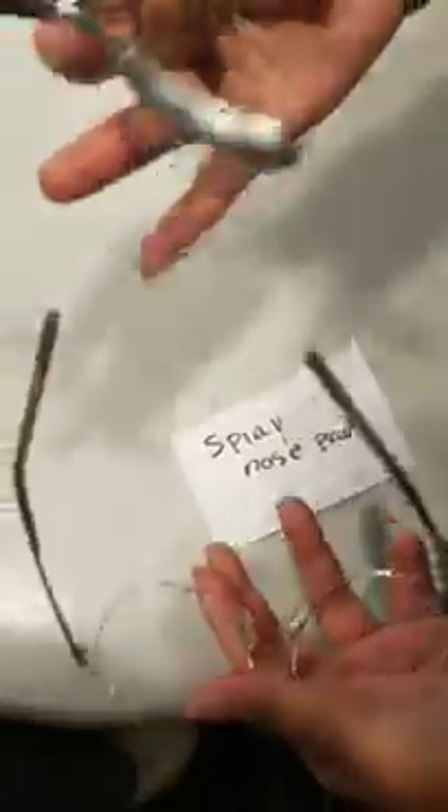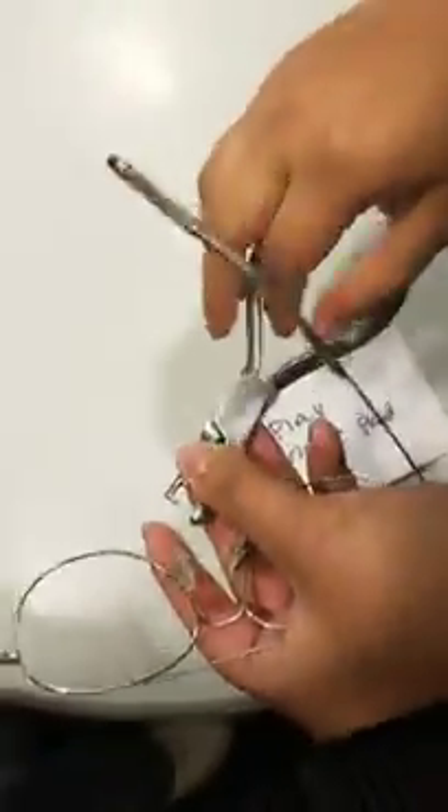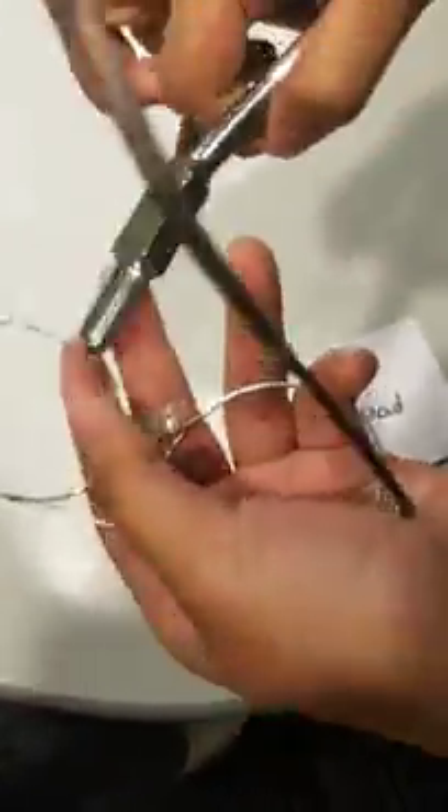In his case it's hitting the back of the nose, which can cause red marks and pain. So the way to fix this is you use your nose pad plier.